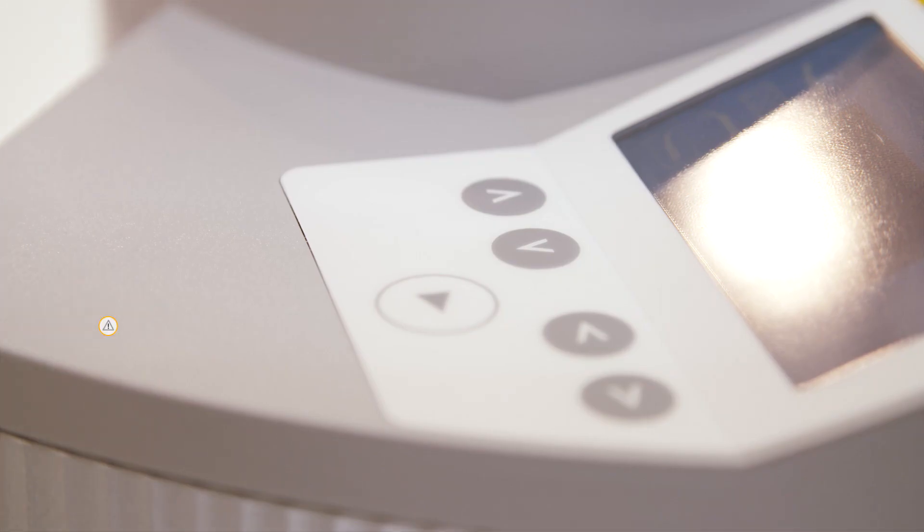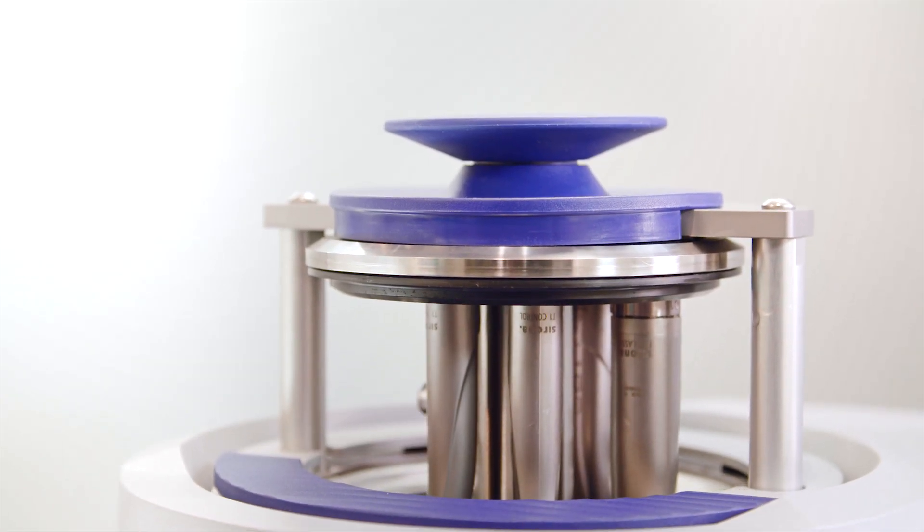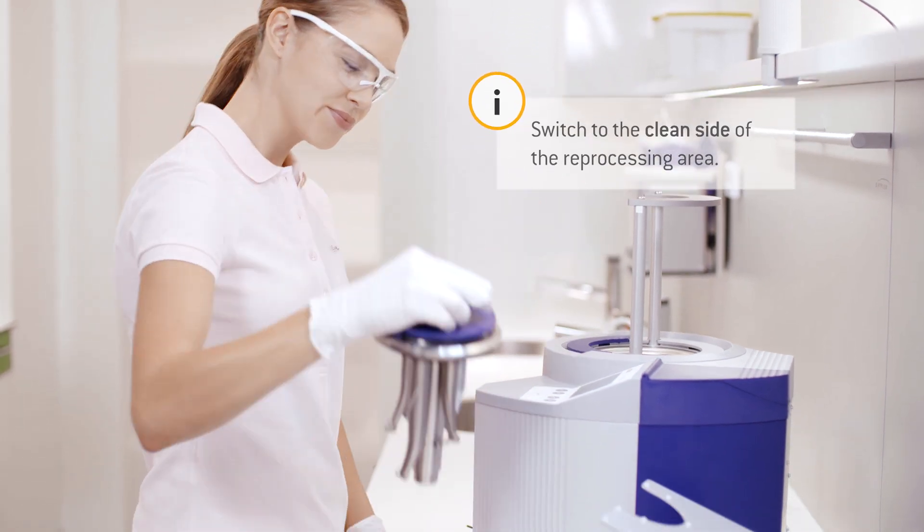To open the lid completely, simply press briefly on the down button. The lid can now be removed. Caution! Hot!